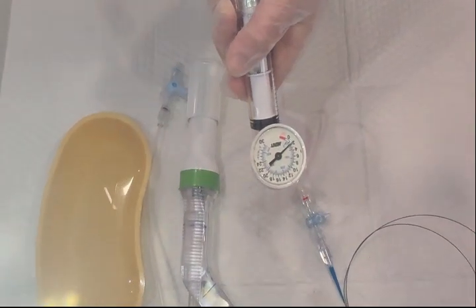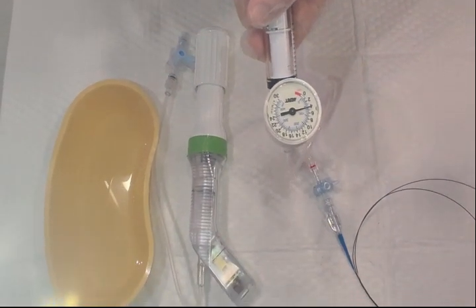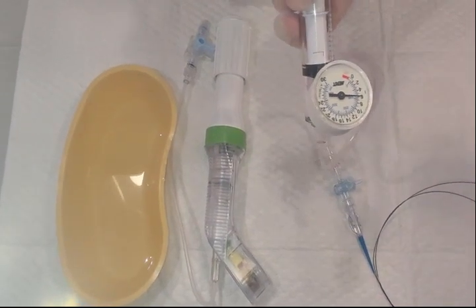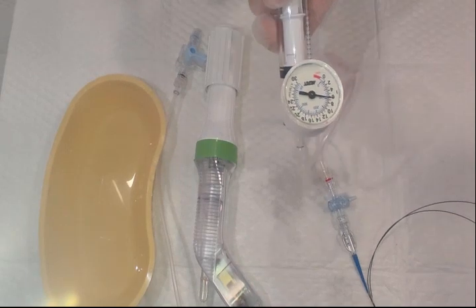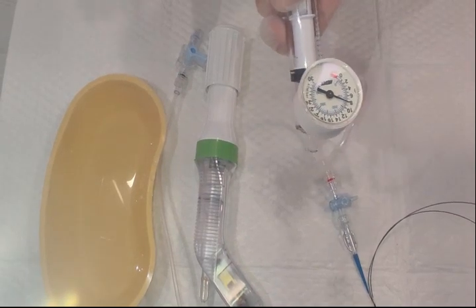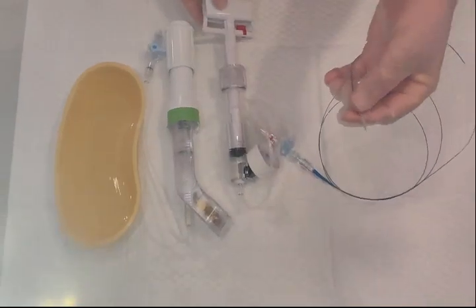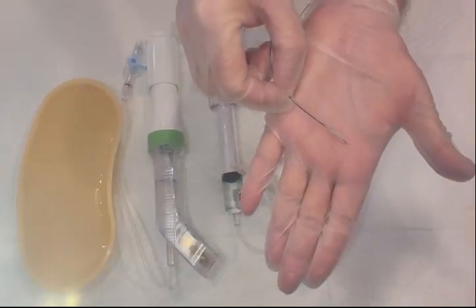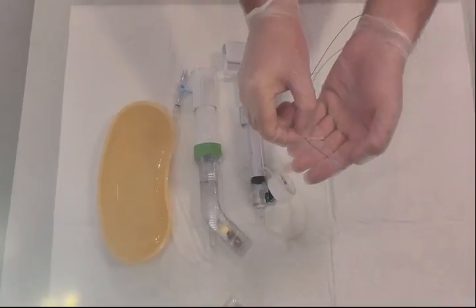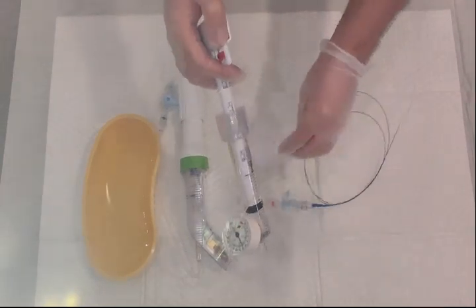Going clockwise on the meter will start inflating the balloon. For example, if the doctor wants you to reach six ATM — ATM stands for atmospheric pressure — or eight, ten, or any desired atmospheric pressure, you continue clockwise. I will also show you the balloon so you can see how it looks at a given pressure. The balloon is now inflated.